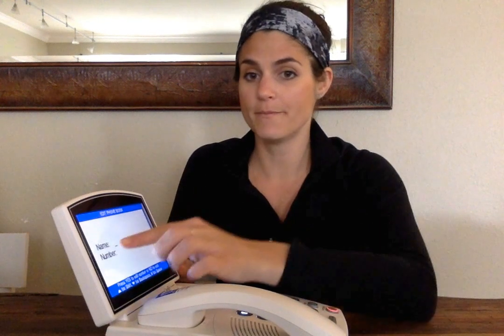By pressing yes, it'll ask us just like it did on the speed dial buttons. It'll give us the name and then the number. That cursor again is up here because we start with the name. I want you to fill this out just like you would the speed dial buttons. Now remember, when you do your speed dial buttons, that does not mean that they go over into your phone book, which is fine.